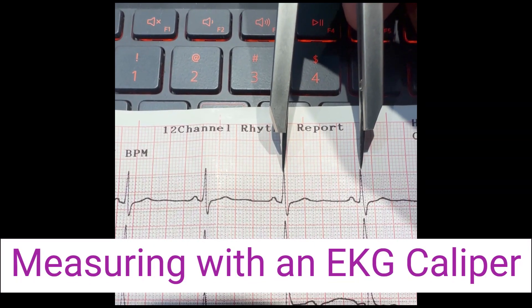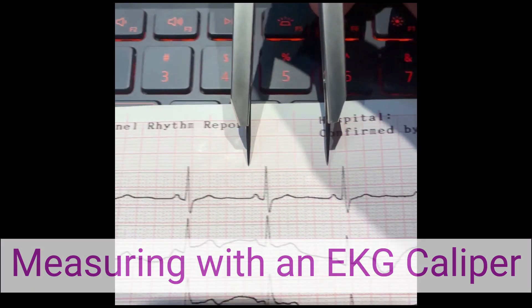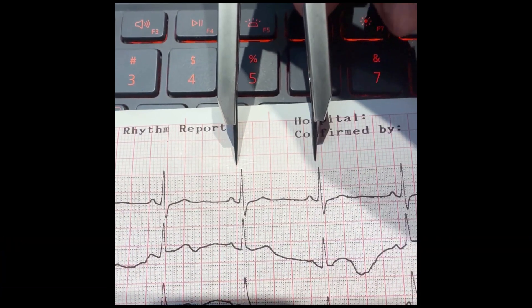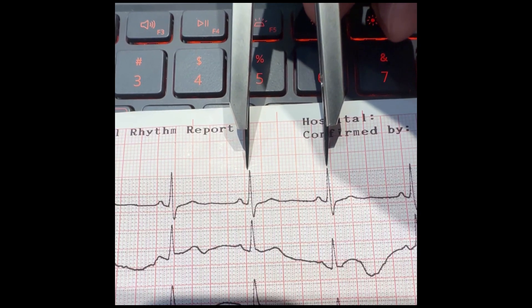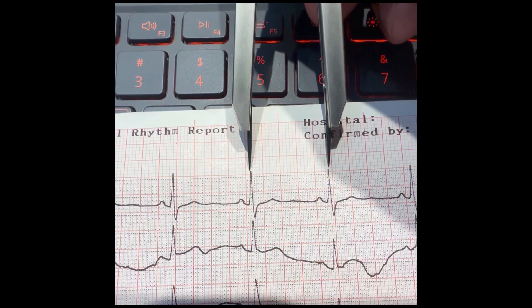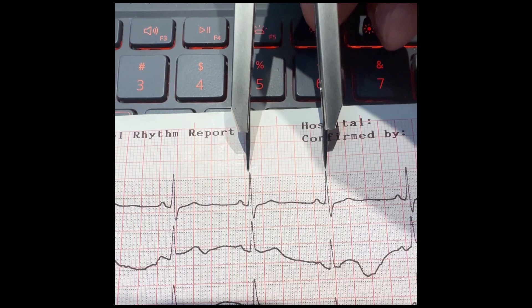To measure the regularity of an ECG rhythm, you can measure the R-R intervals on an ECG strip using a ruler or caliper. If the R-R intervals are consistent, then the rhythm is considered regular.